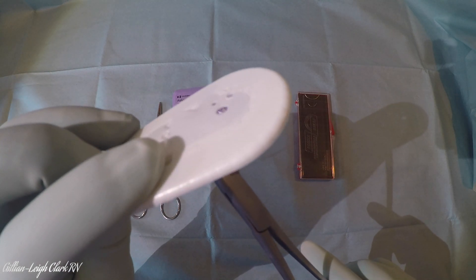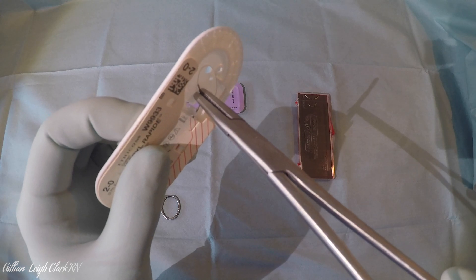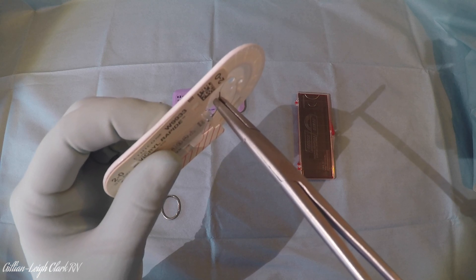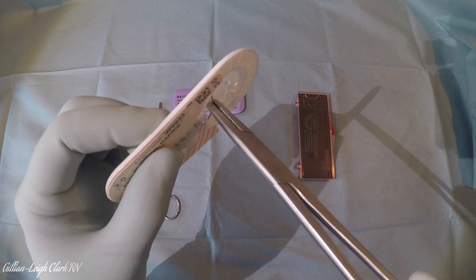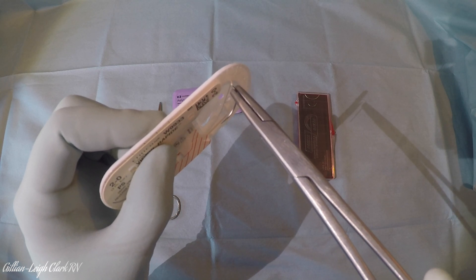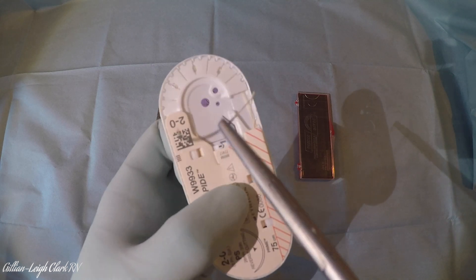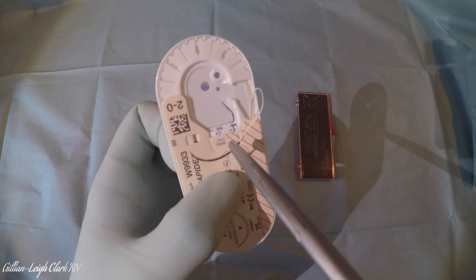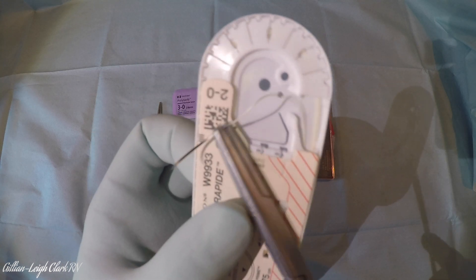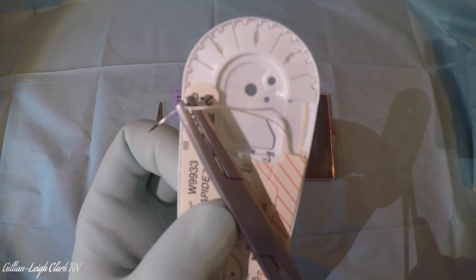You can see that little plastic bit moving if you turn it over. Push in against the needle and then clamp the jaws shut. To keep safe, instead of pulling it out, rotate your hand anti-clockwise just a fraction - that releases the sharp edge of the needle so everything's still safe. It's mounted just in advance of where the suture material is attached to the needle, and just a millimetre or two over the other side of the needle.